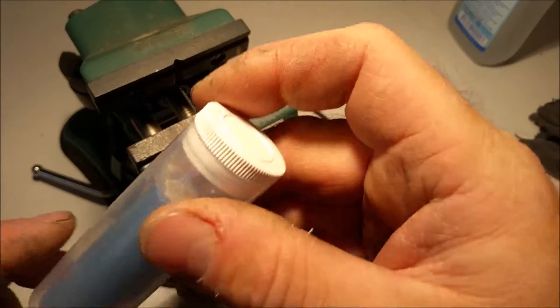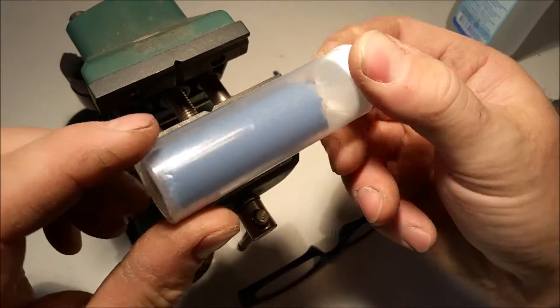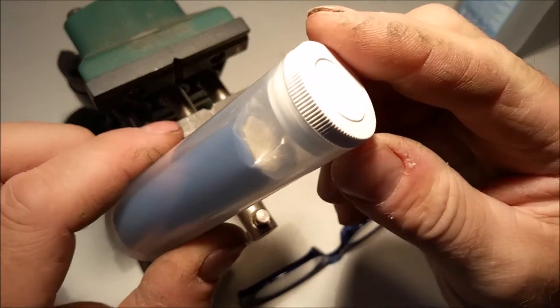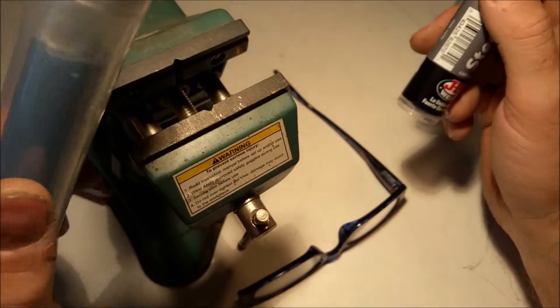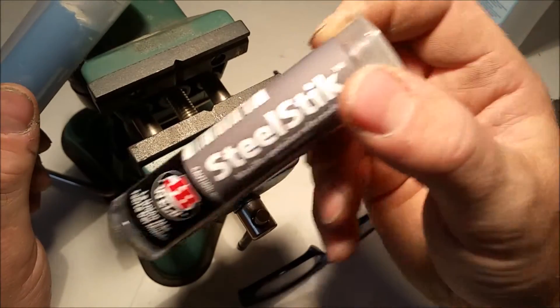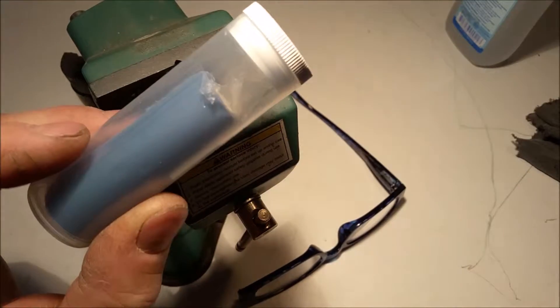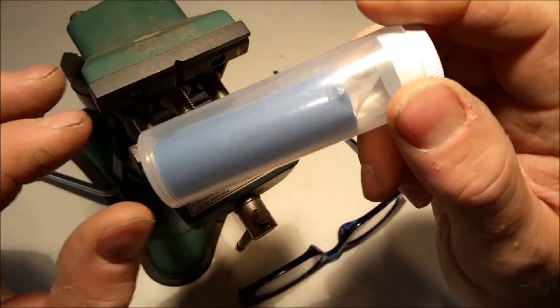Okay, we're gonna use this, it's a multi-purpose stick, like an epoxy stick. This is for steel, but this is for plastic wood and all that stuff. So let's get to it.